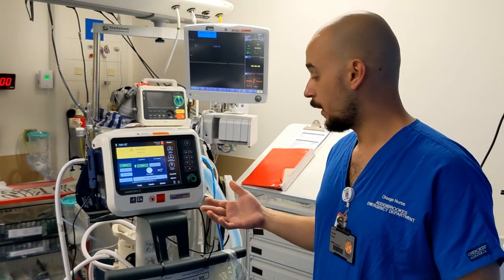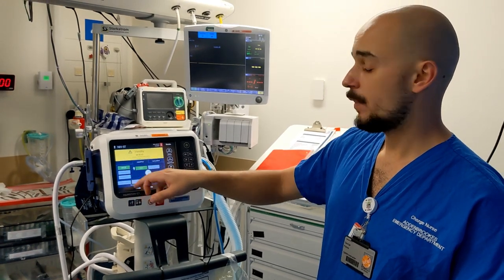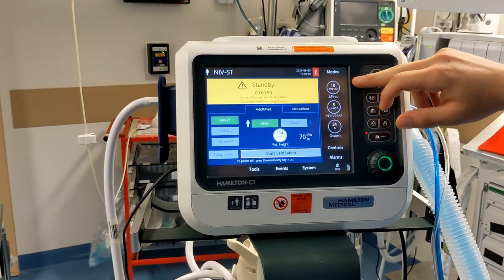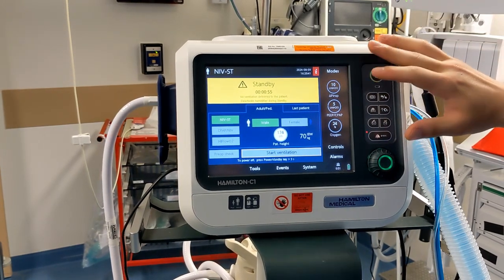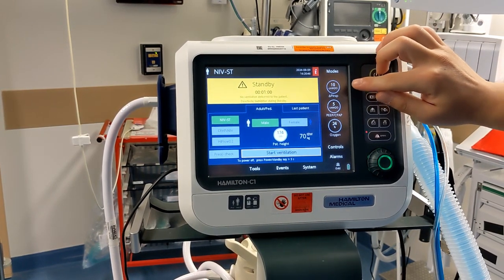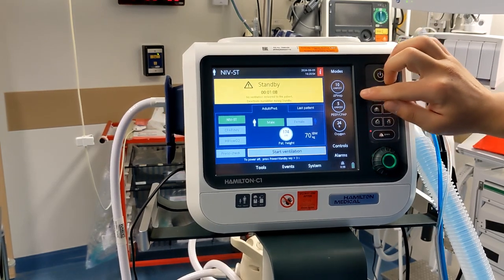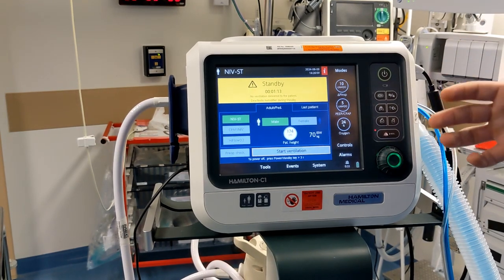If you want to start BiPAP on a patient, on your left your options: NIV-ST, that is your BiPAP. You can notice that the default settings are 5 as PEEP and 10 delta P inspiratory. This is not your IPAP — your IPAP is actually the sum of these two numbers. So here you have an IPAP of 10 plus 5, which is 15, and an EPAP of 5. So with default settings you are starting the patient on 15 over 5.